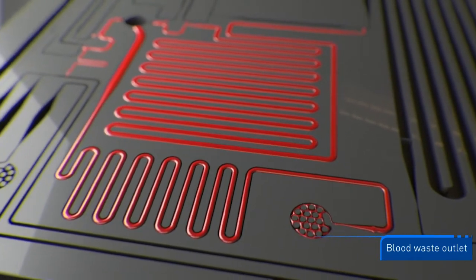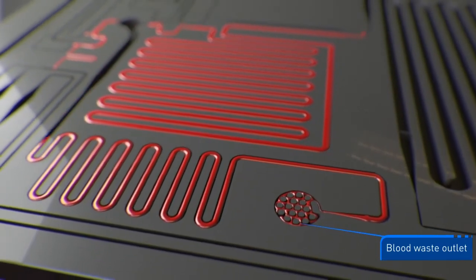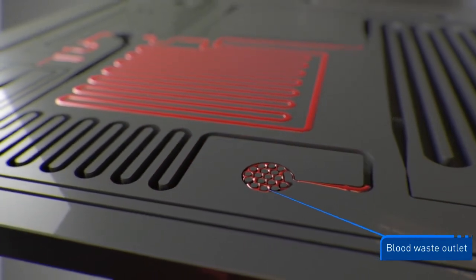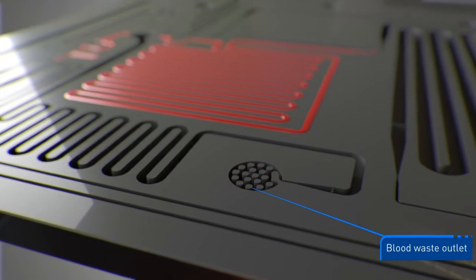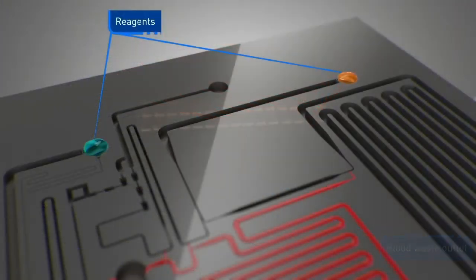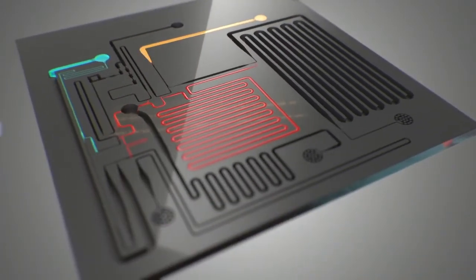Various microchannel configurations are possible, offering great versatility in the design of nanofluidic processes that automate virtually any diagnostic workflow. When the test card was inserted into the reader, reagents were released and drawn into the nanofluidic processor.